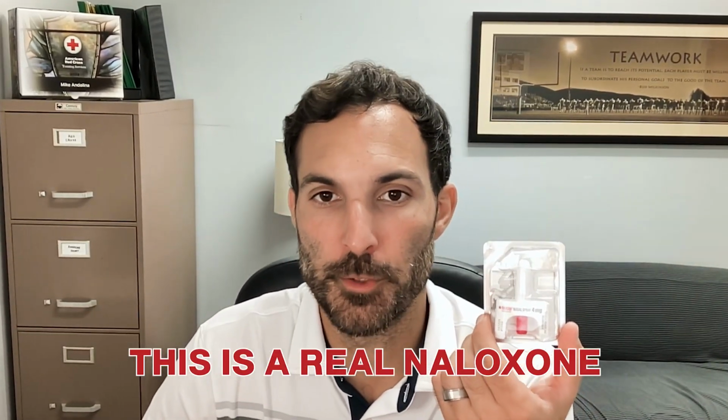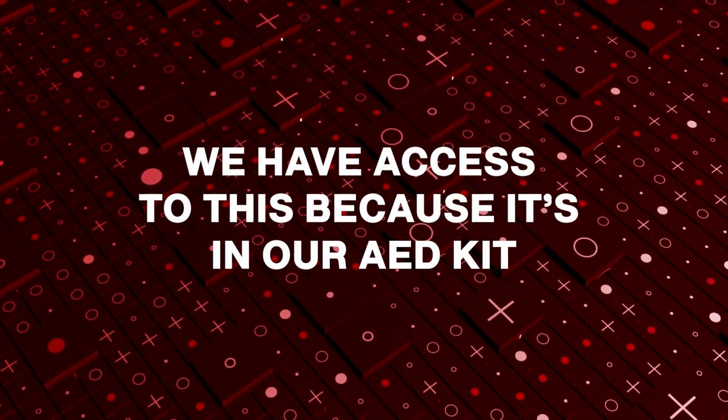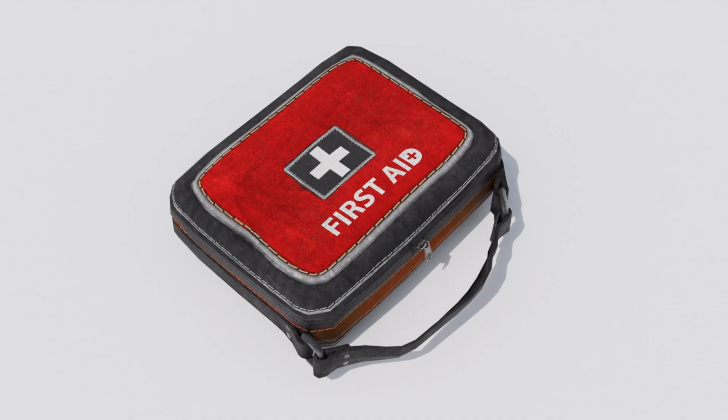These are really simple to use. This is a trainer, obviously. There's no naloxone going to be administered using this little spray. You can see there, this is a real naloxone, a real nasal spray, otherwise known as Narcan. We would use this when we have an opioid overdose, of course. If we suspect opioid overdose, we have access to this because it's in our AED kit. That's when we want to administer it.